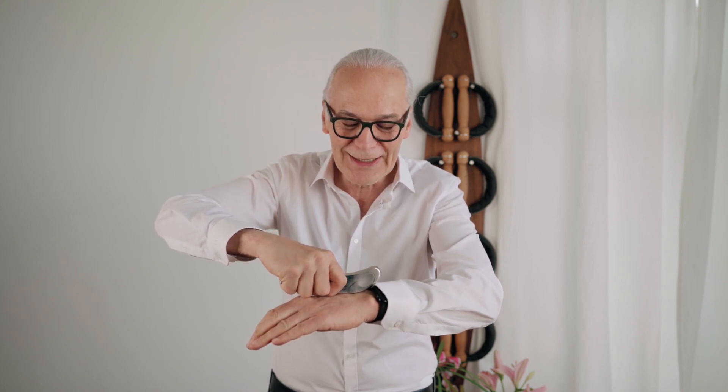This is the nice incorporation of this indentation shape. And of course, you also have a hook. With the hook, you can do more local work, either with a more round shape or with very, very sharp shapes. And of course, when you work on the septi, you can just take a local approach to separate one muscle envelope on one side from the other side and do a shift-like rocking movement in between.